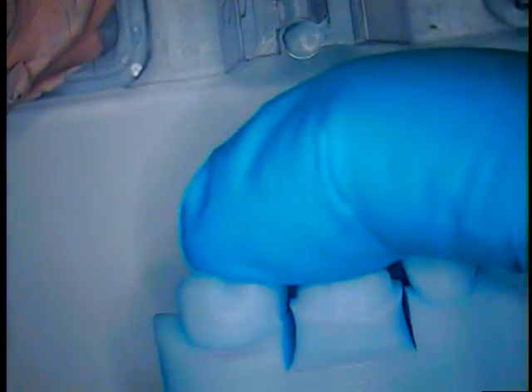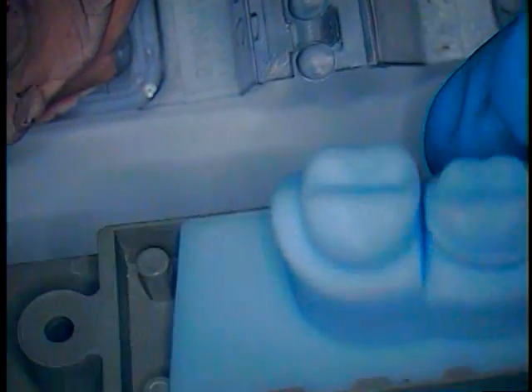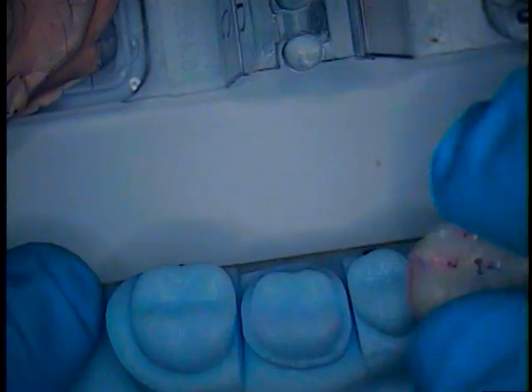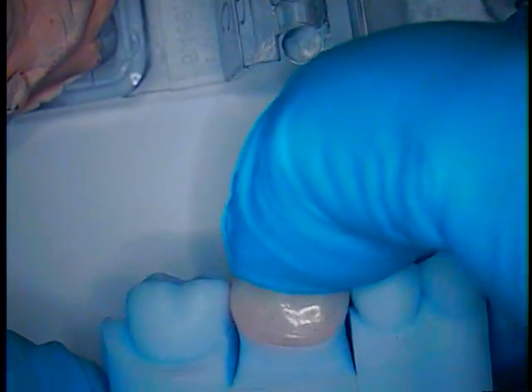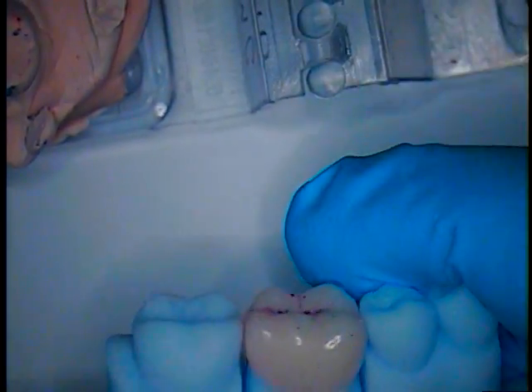And again, there's absolutely no daylight. These are just made individually by a computer to fit inside of this precisely without any spacing whatsoever. And then this is the final fitting perfectly on top of that. This is our man-made with an open distal contact. So keep that in mind when we go to look at that on the Typodont.